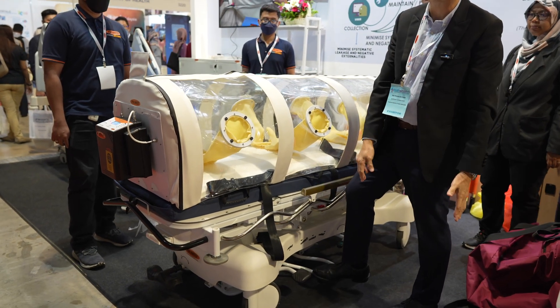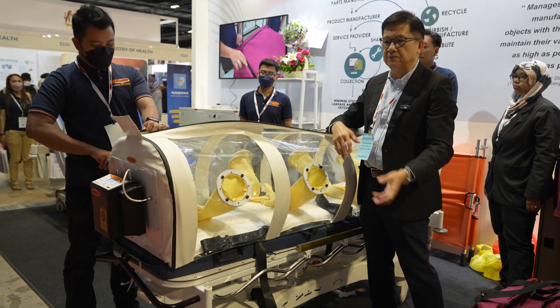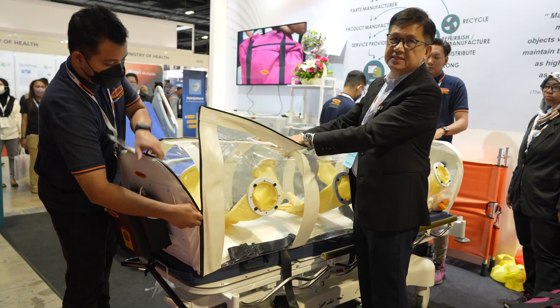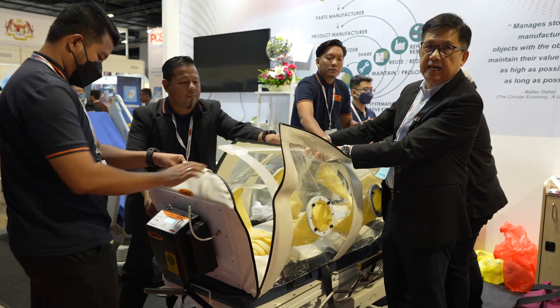If the patient is on the floor, we can lift it up easily and open it up. It opens like a butterfly so that we can move in and place the patient inside. All these parts are made of very flexible material called polypropylene or PP, so it can be taken out easily and is very lightweight.